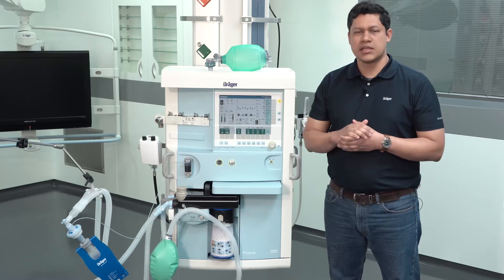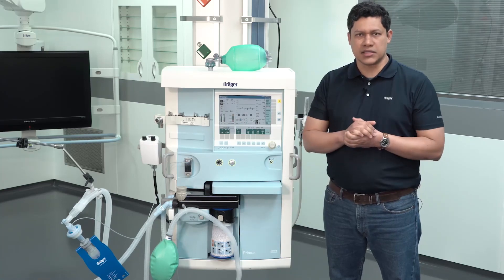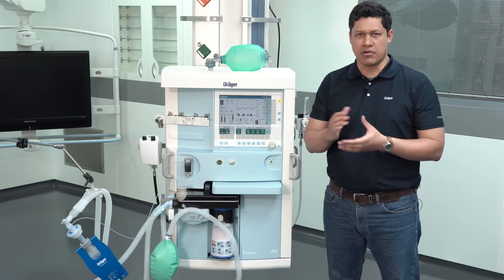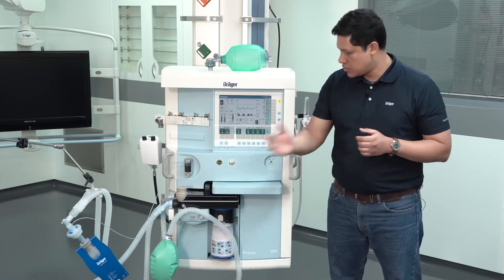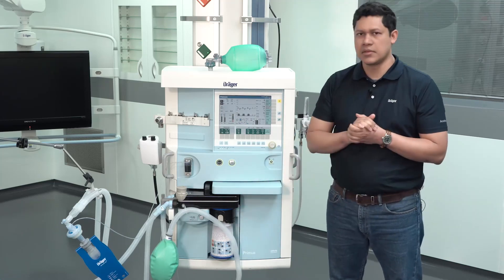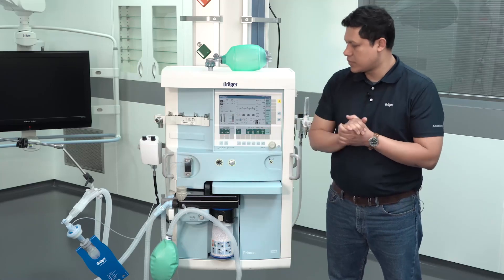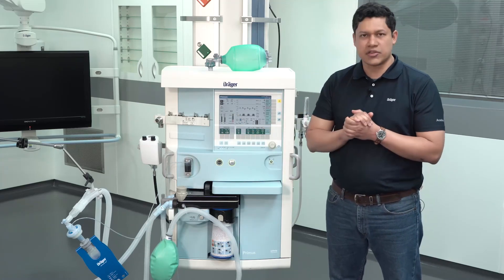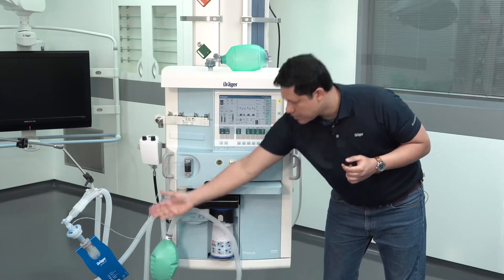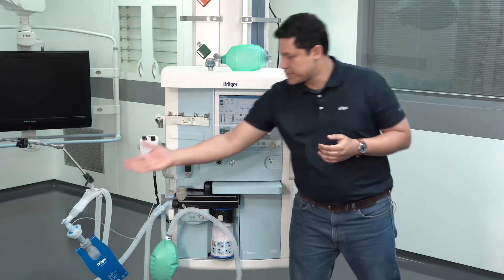It is recommended to check on the accessories at least every 12 hours: the sodalime canister, gas measurement water trap, respiratory breathing circuits, and patient filter.